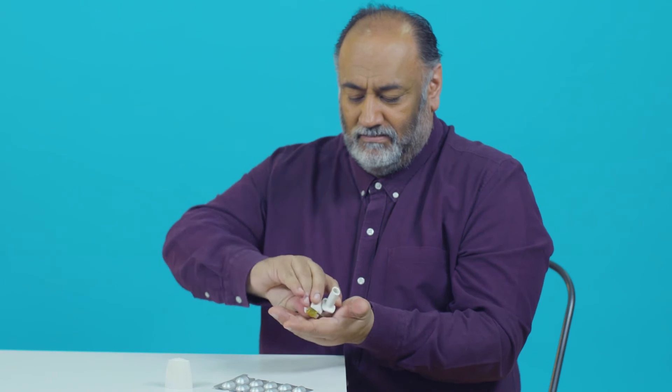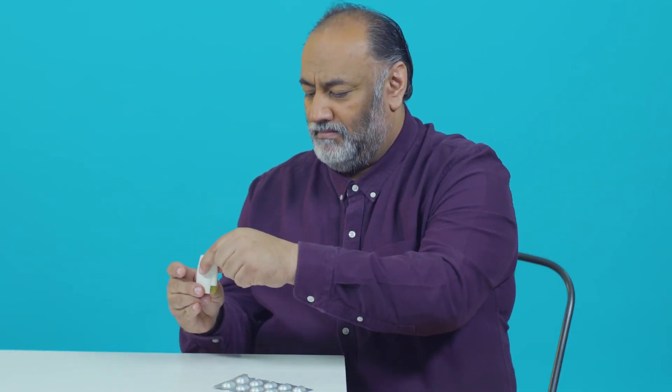When you've finished, open the inhaler and check that the capsule is empty. If it is, tip it out into the bin. Close the inhaler and replace the cap. If the capsule isn't empty, repeat the steps. If you've used an inhaler that contains steroids, rinse your mouth with water and spit it out to reduce the chance of side effects.